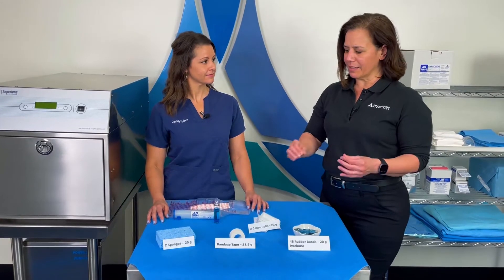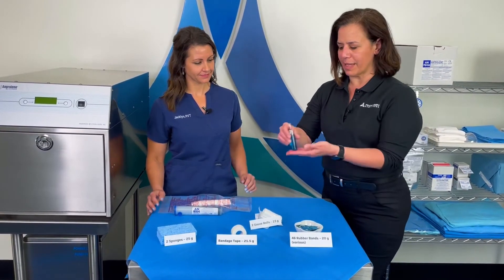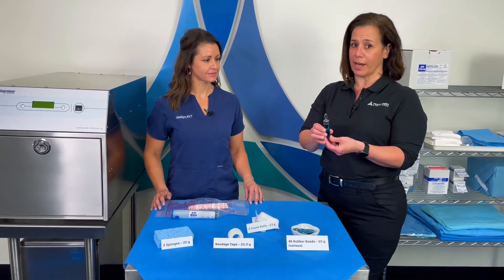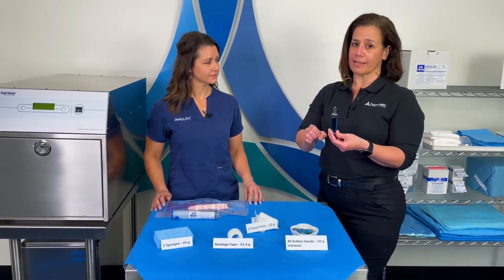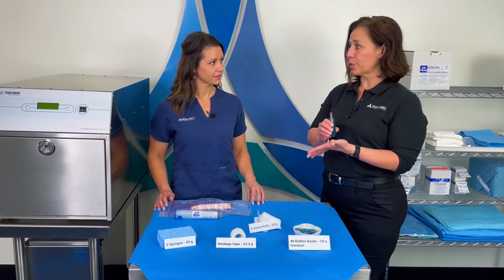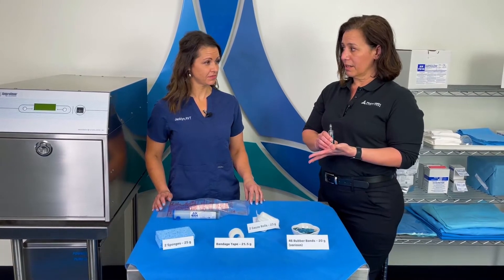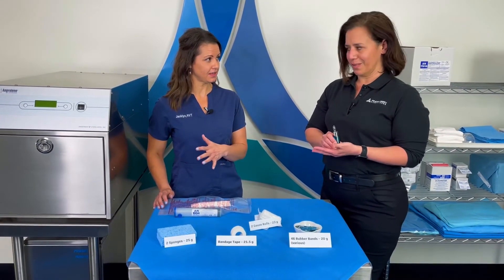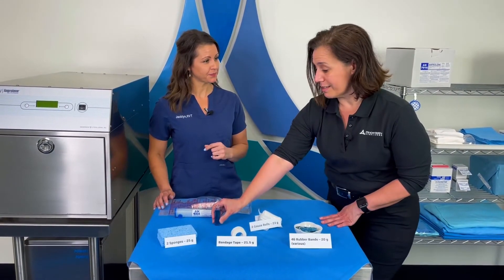We only use 17.6 grams or 20.6 mLs of ethylene oxide per cycle. Which is like 90% less than some of your competitors — correct, exactly.